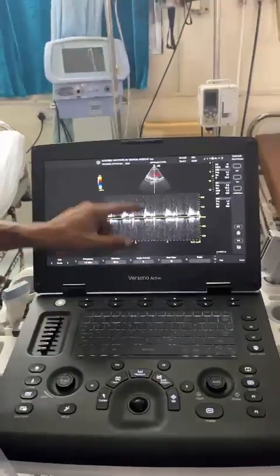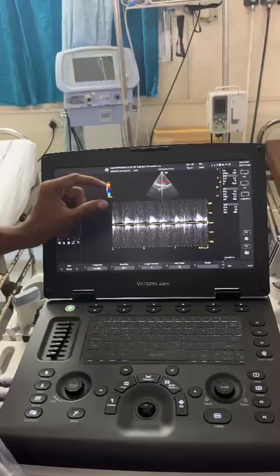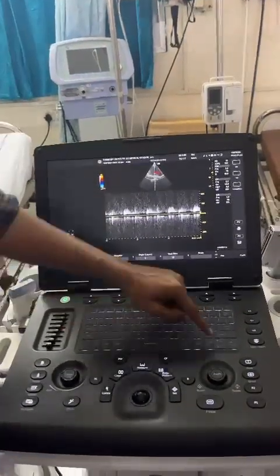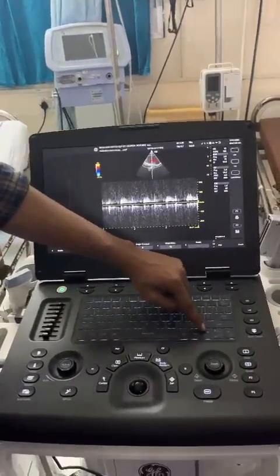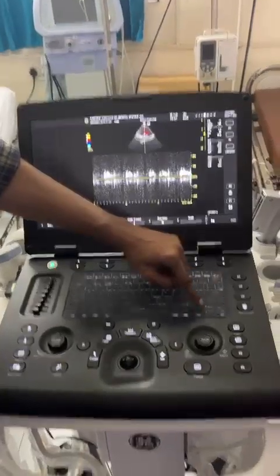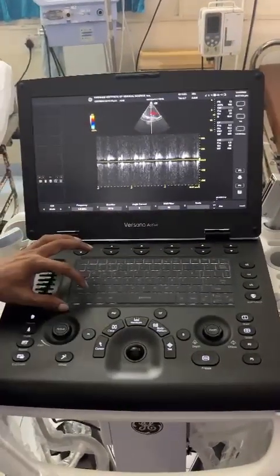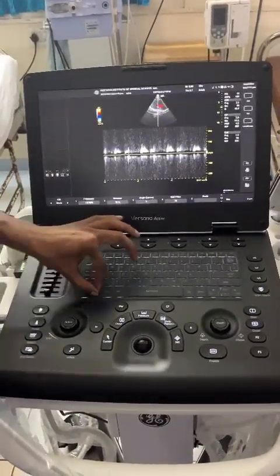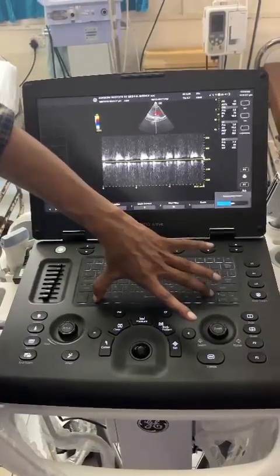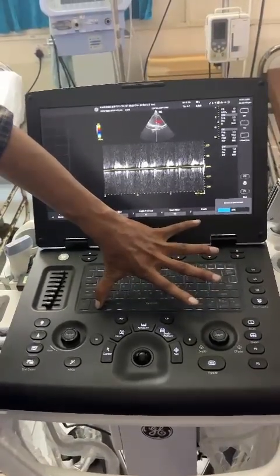For the sound, if you want to increase it, we have this on the keyboard — low volume, high volume — but you need to press Fn along with that button. So you will get a volume option.